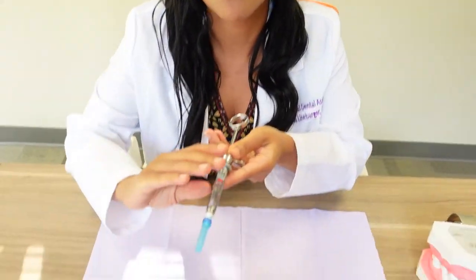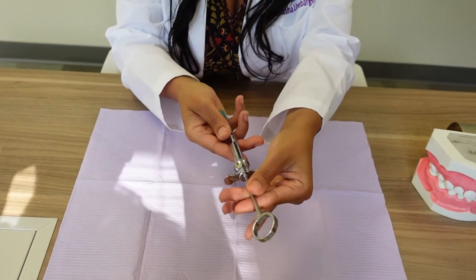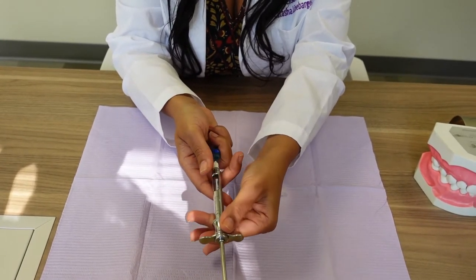You hand the aspirating syringe like this. Not only that, your hand is going to be this way. When the doctor grabs for it, you're going to pull back and it takes the top off. You see that?